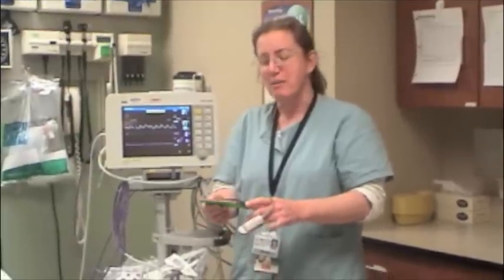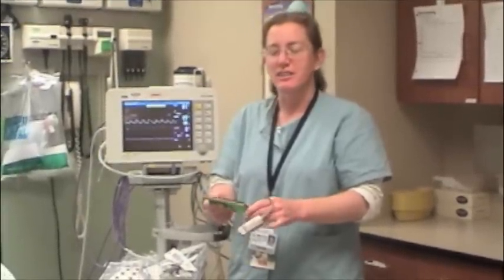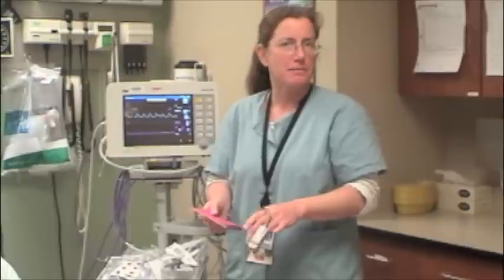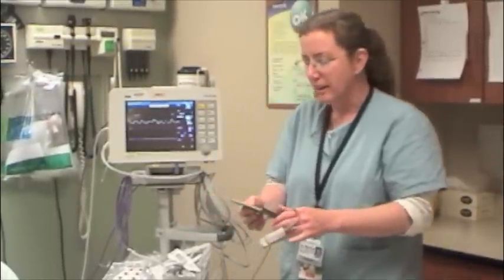My name is Kim. I'm a registered nurse at Memorial Medical Center in the emergency department. This video is going to help explain capnography's uses, its waveforms, and also how to chart it.